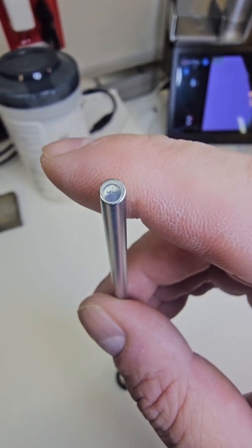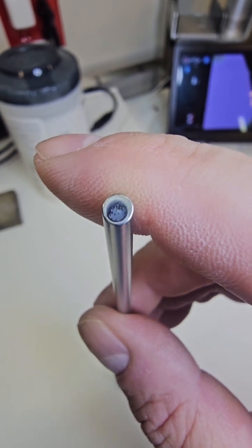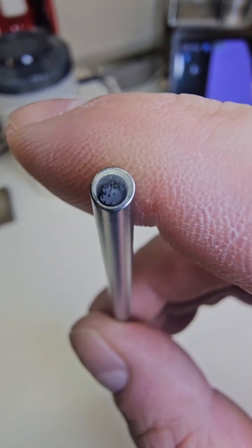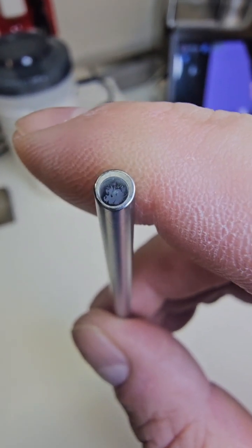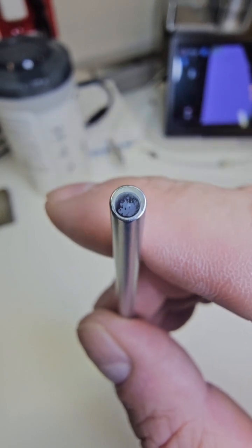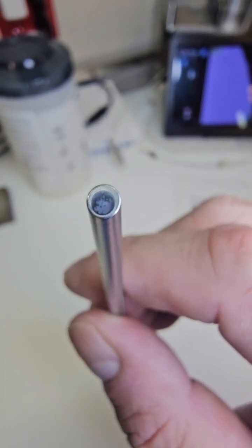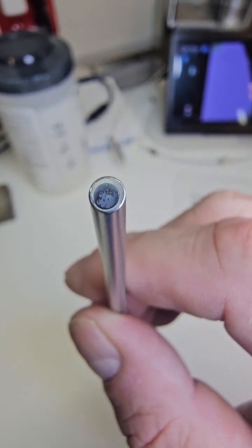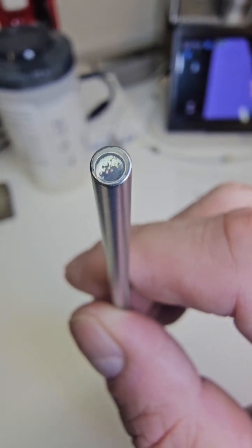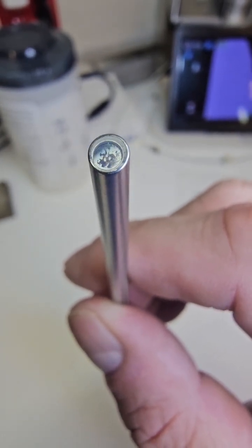That haze right there, that little glaze right there will give you a distorted view, and we need to determine whether this is internal or external. So what I'm going to do here is show you how to remove that little glaze. You see that little spot there.